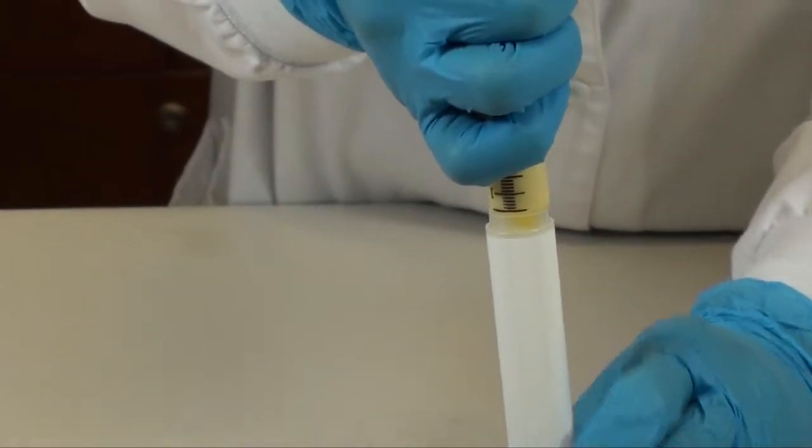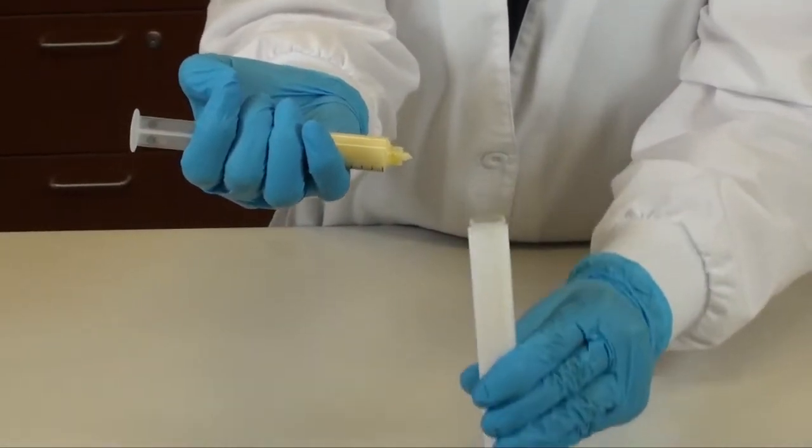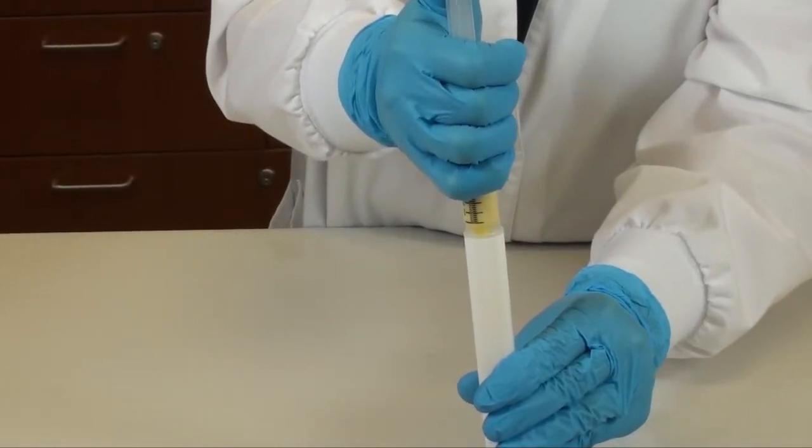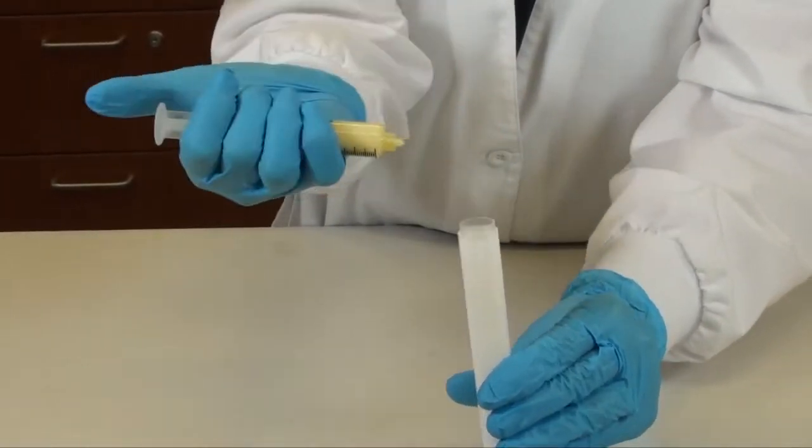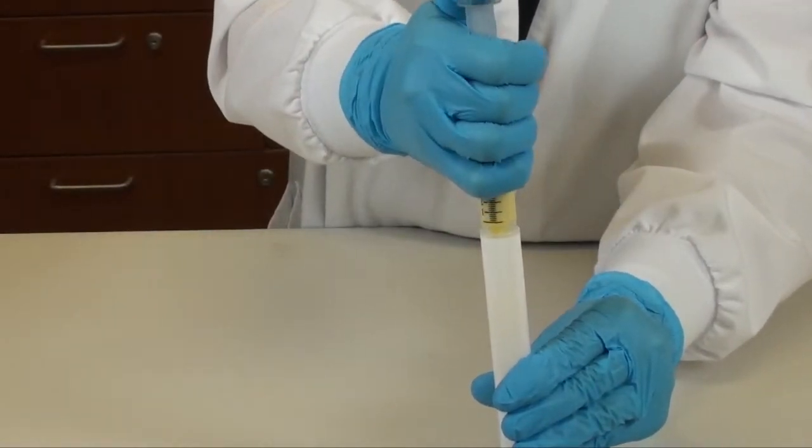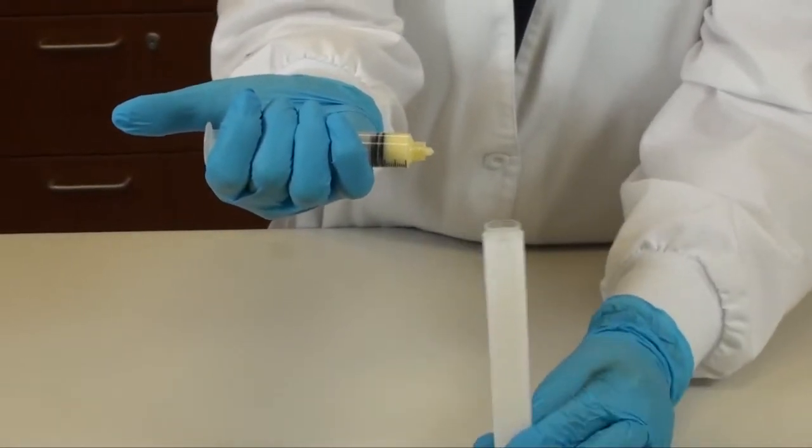And what you need to do is just go ahead and just like in an ointment jar, you want to go ahead and add some and periodically tap the air bubbles. So be sure you're adding to the center. You can see that the gel is filling the window of the AccuPen.